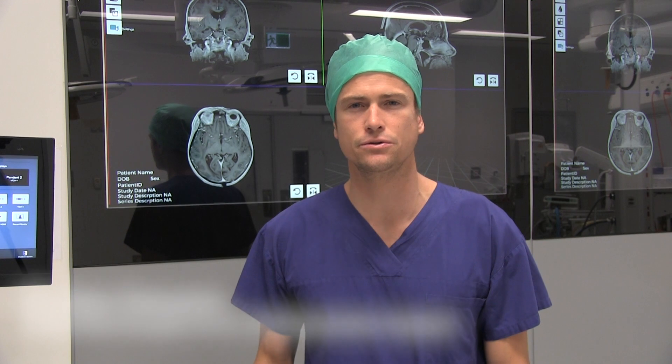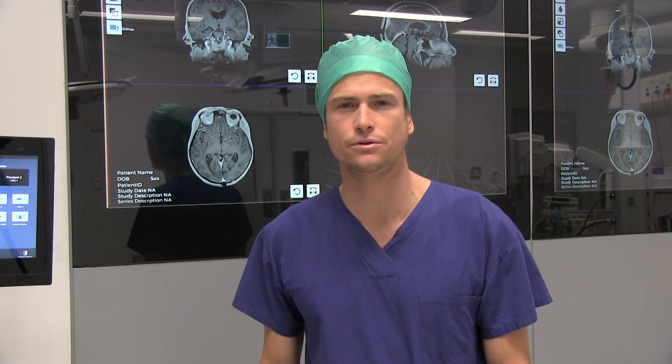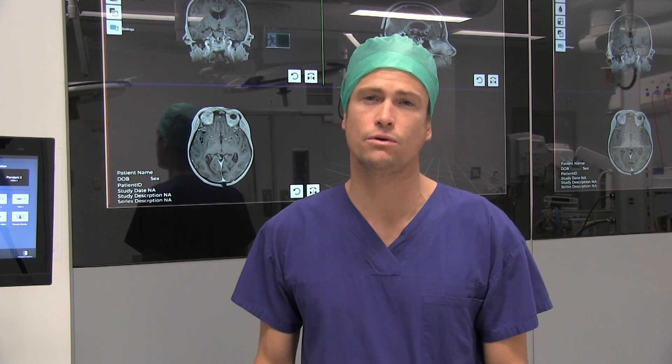Hello, I'm Dr. Alexandre Simonin. I'm a neurosurgeon and today I will demonstrate how we can use MedVR to assist with the surgical planning of a patient with a brain tumor.